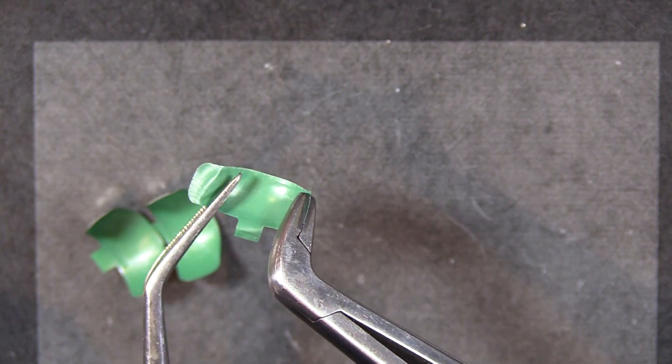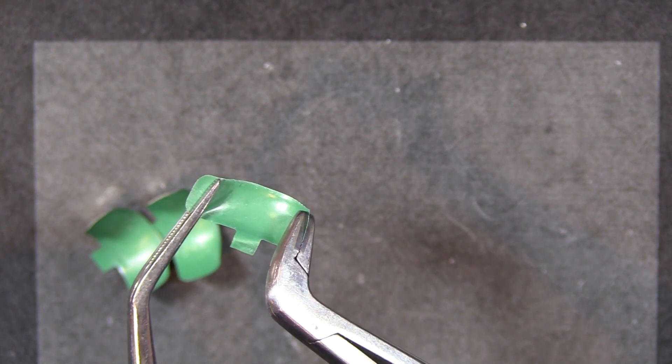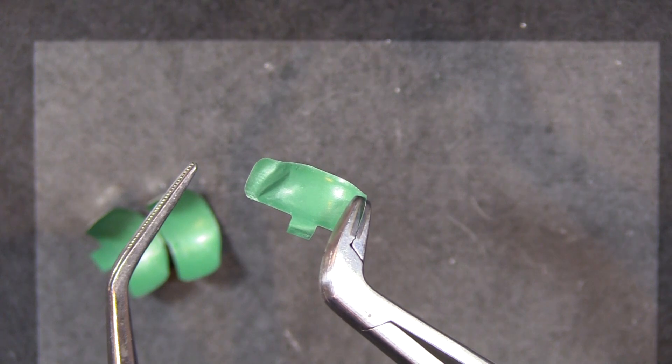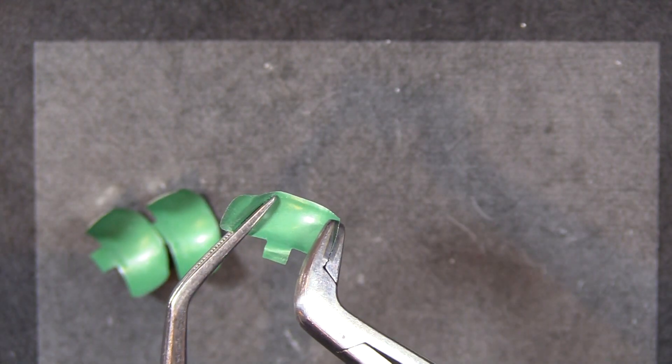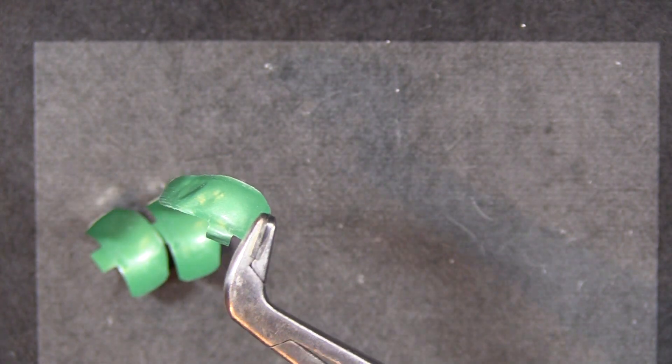But as you can see, the difference here is pretty substantial. I'm going to grip this as hard as I can with the cotton forceps and I can just pull it right out with the BFA, the band forceps. Those interdigitating carbide teeth really make a difference.